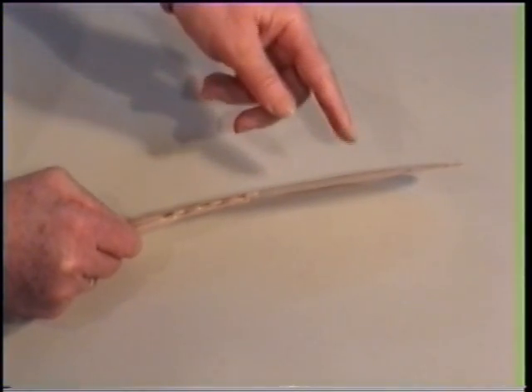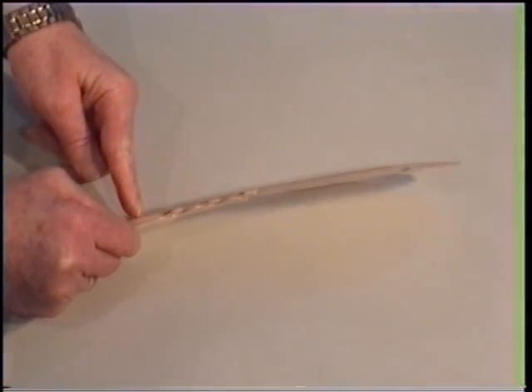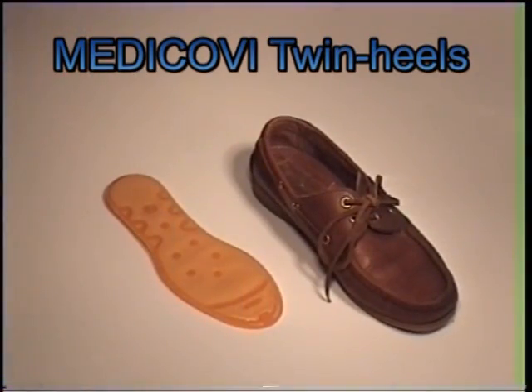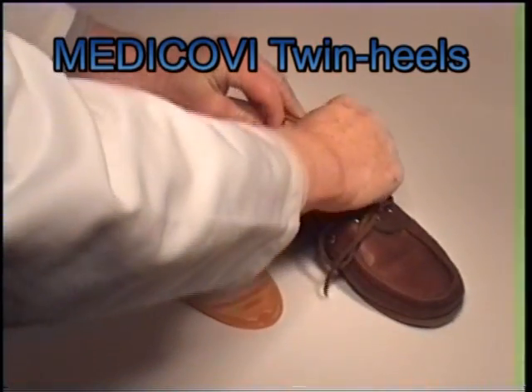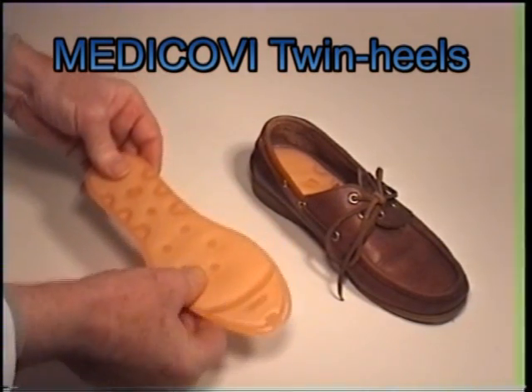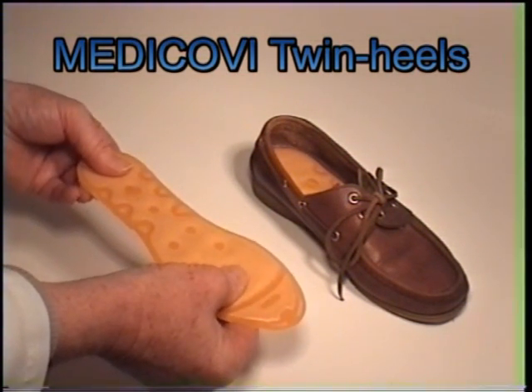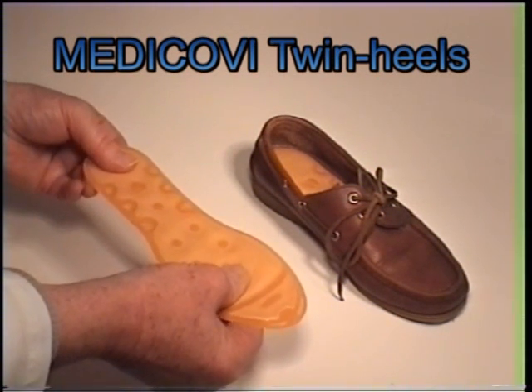The MEDICOVI Twin-heels are 2 mm thick at the front and approximately 4 mm in the heel, where the patented heel protector is. The advantage with the MEDICOVI Twin-heels is therefore that it will fit inside almost any shoe, which is very important. It is the constant relief of the heel combined with the ongoing increased movement of the foot's lengthwise tendon which will increase the flexibility of the tendons. This is necessary for a solution to the heel problem.